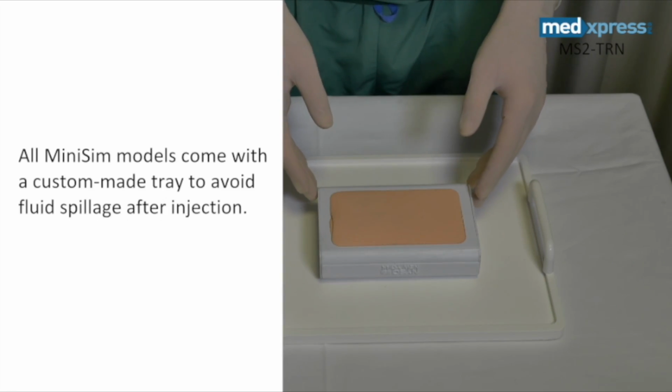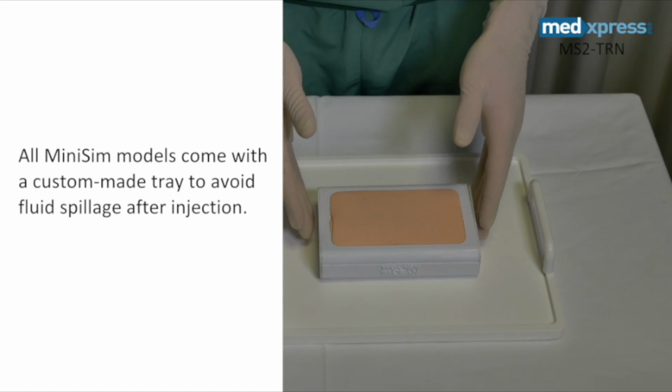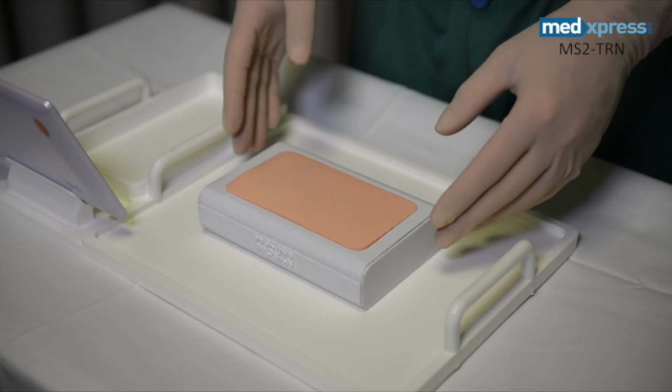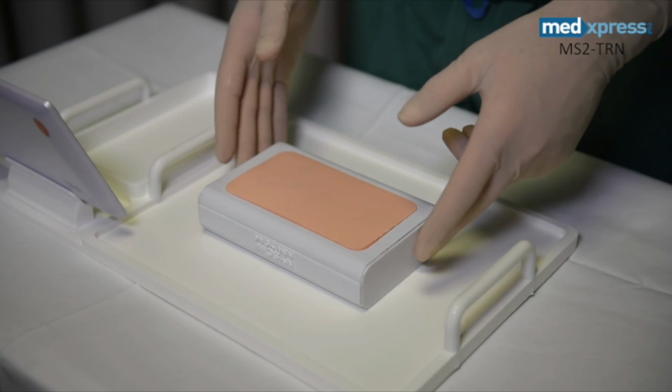The presence of the tray is important as well because it allows any injectate to leak onto the tray without soiling the work surface. Using sterile water as the injectate allows for easy and safe cleanup after procedures.